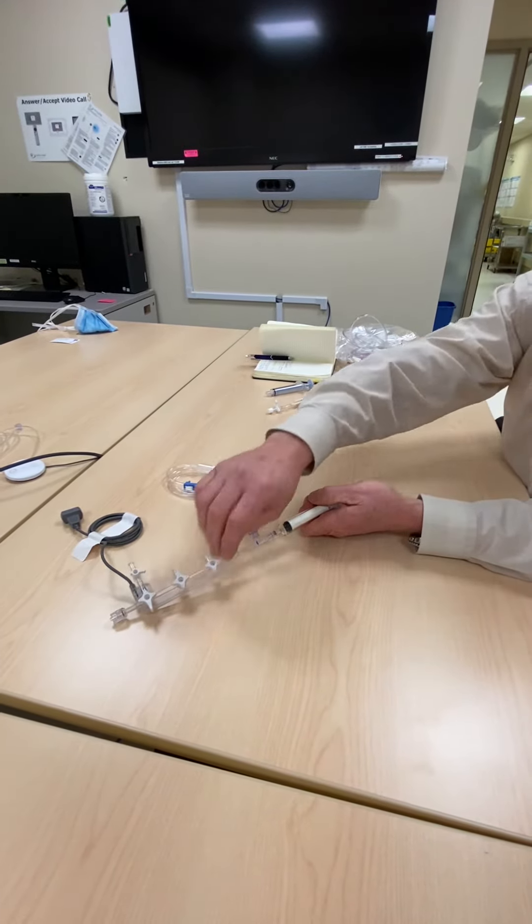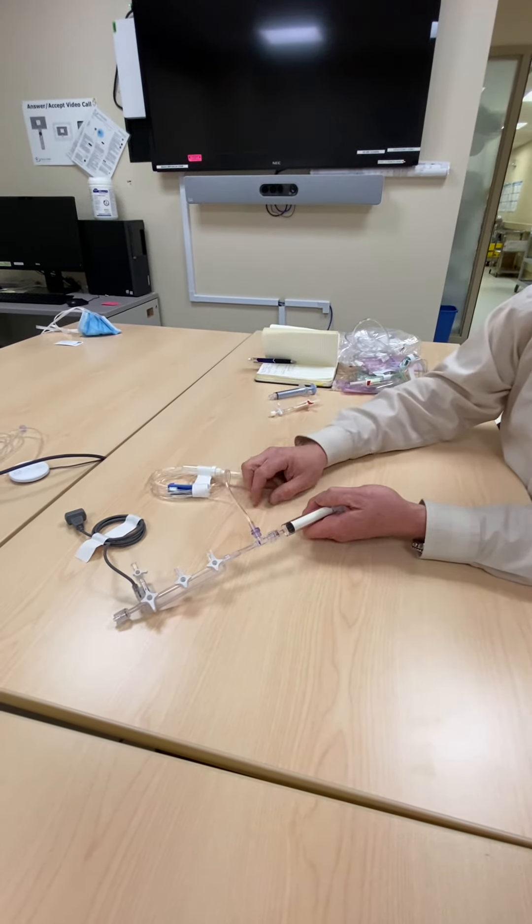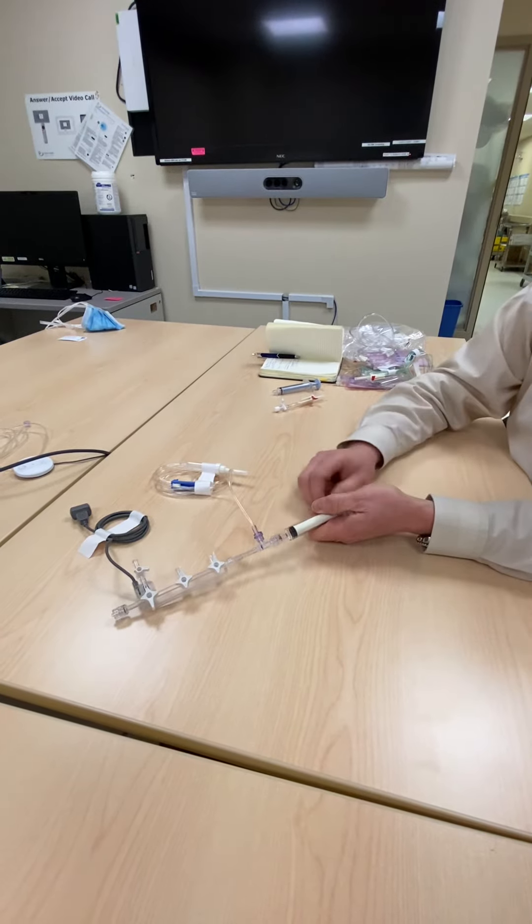There's no more turning stopcocks to fill with saline or with your contrast or anything else. It's just pull, fill with contrast, inject into the patient.